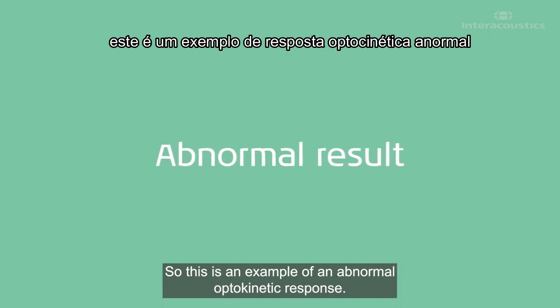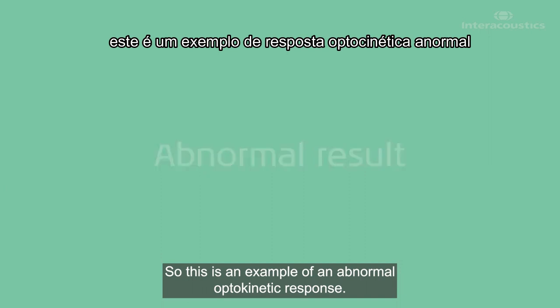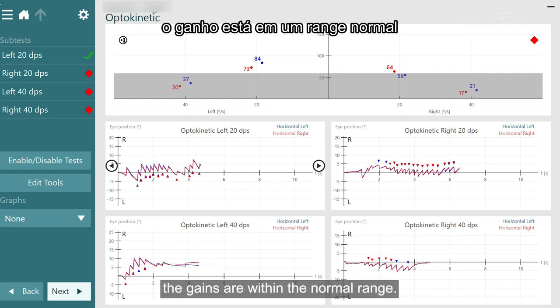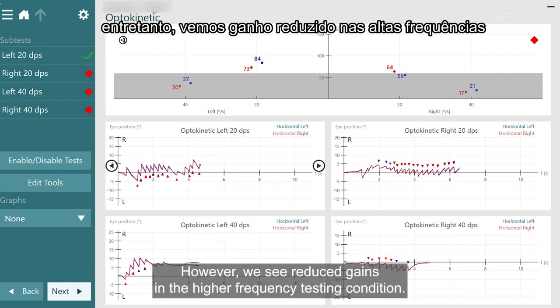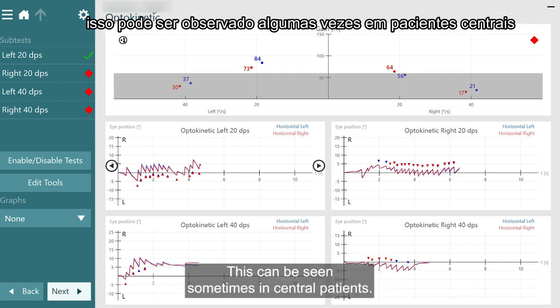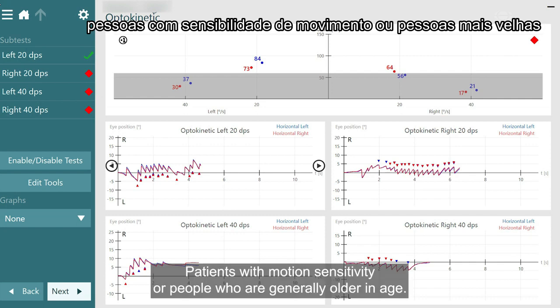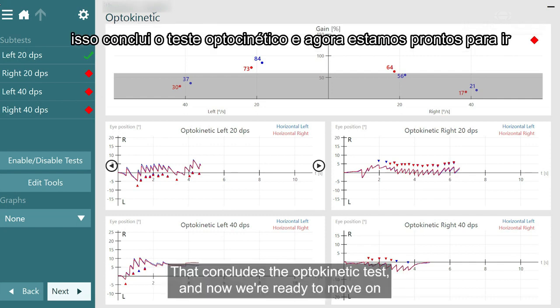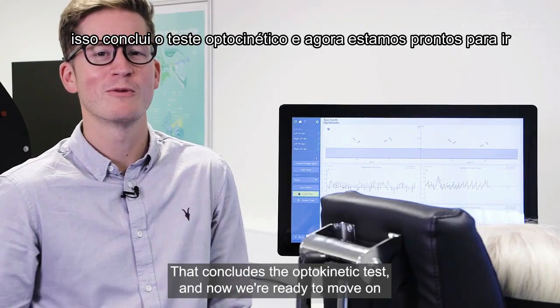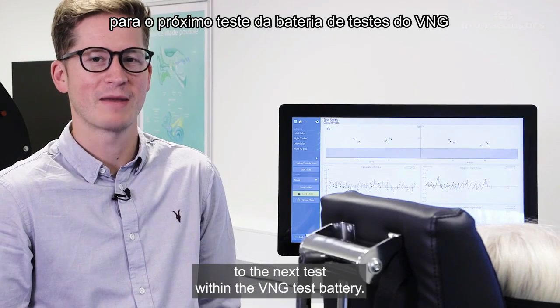This is an example of an abnormal optokinetic response. We can see that in the low frequencies the gains are within the normal range; however, we see reduced gains in the higher frequency testing condition. This can be seen sometimes in central patients, patients with motion sensitivity, or people who are generally older in age. That concludes the optokinetic test, and we're now ready to move on to the next test within the VNG test battery.